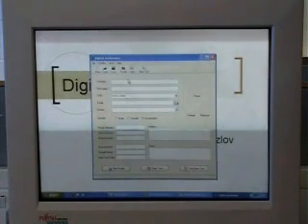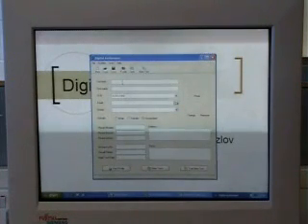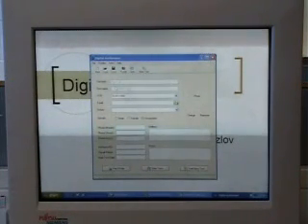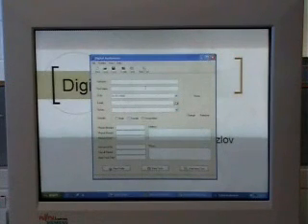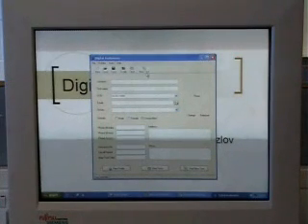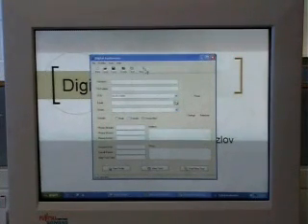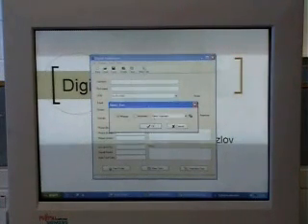We'll go to create new profile. Here you enter basic information about the person, surname, first name and so on. Once you set up your profile you can start automatic test.